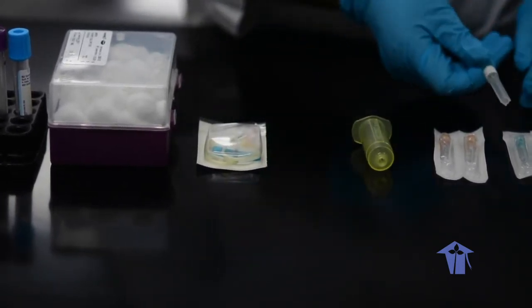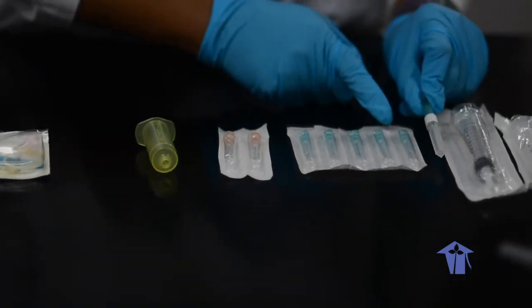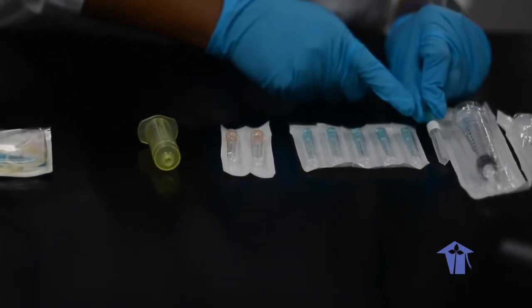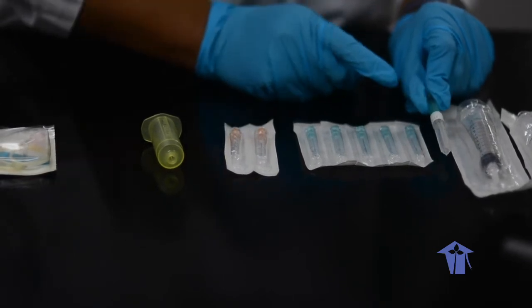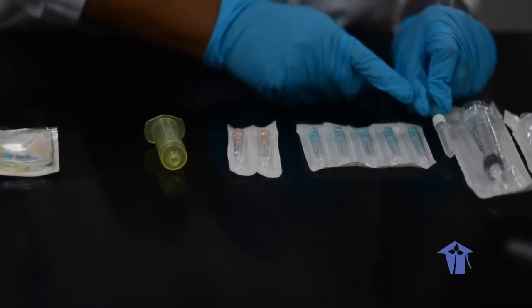So what you can also notice class, is they have followed the color. So this particular color is for the 21 gauge.